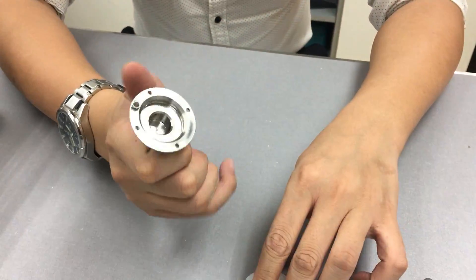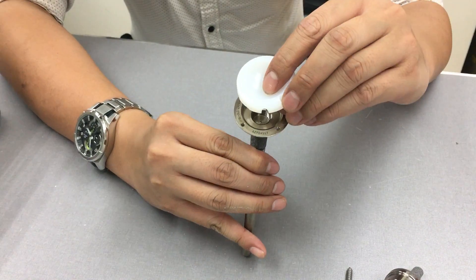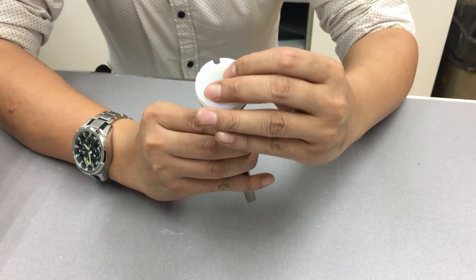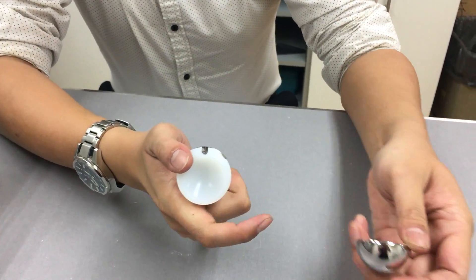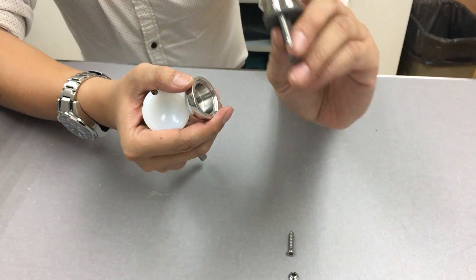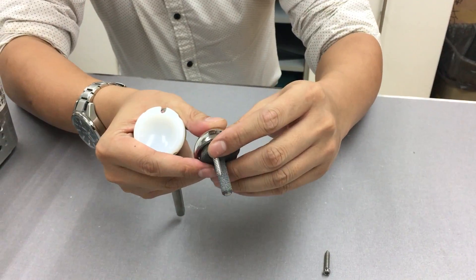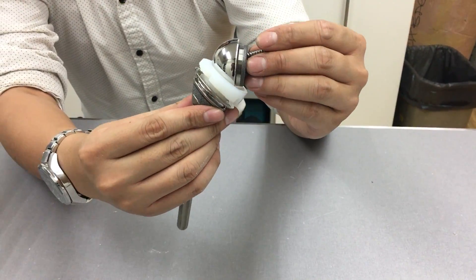So how the full construct will look like is: imagine you have your stem within your humerus, and then you put it on your liner, like that for example. Your base plate will be in the glenoid already, then you fix on your glenosphere, and this is the whole construct. From the side view, you can see it in this.